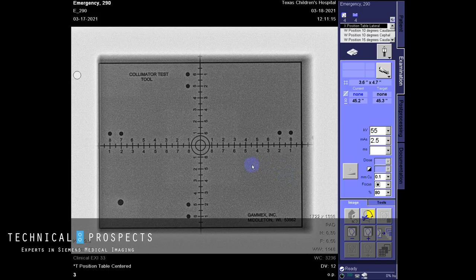When you're using the collimator test tool to align the x-ray field to the light field, the light field is actually here on this border as we see it, but as we can see the x-ray field has actually overshot on the outside of this edge. We have to be within one or two percent for FDA approval of this field. So how do we get this light field to coincide with that x-ray field? That can be adjusted at the collimator.